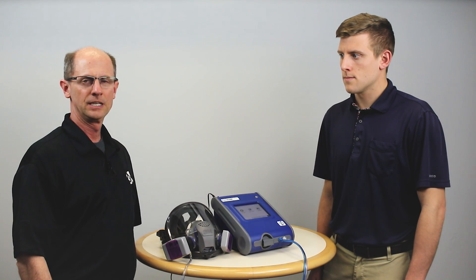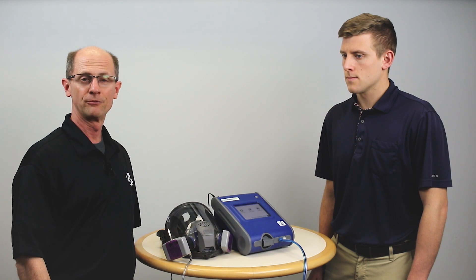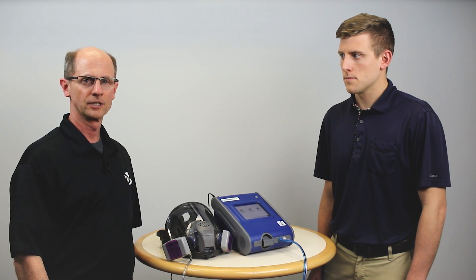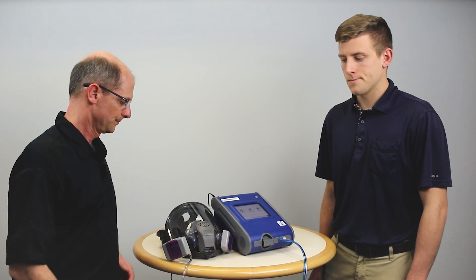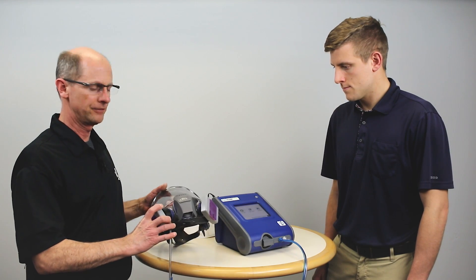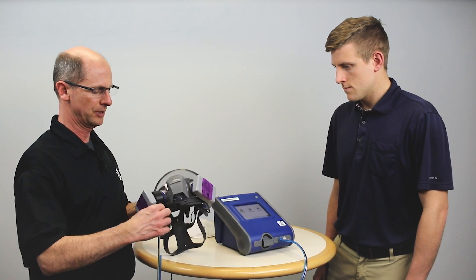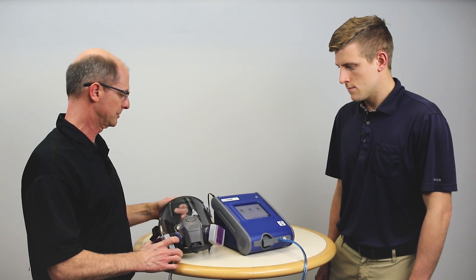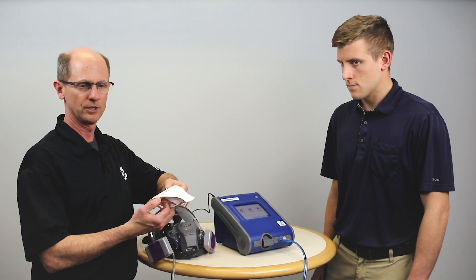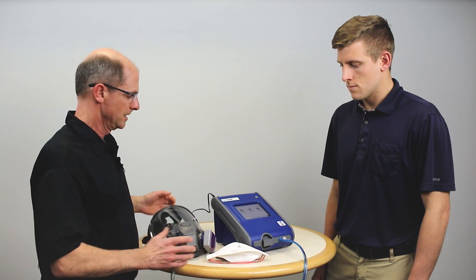This is a great tool to train a respirator user how to properly adjust a respirator, and to help determine what size respirator an individual should use before you start a fit test. I have two respirators set up prepared for fit testing: a full face respirator with a fit test adapter, and an N95 filtering facepiece respirator probe for fit testing.